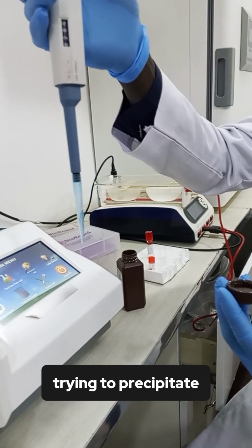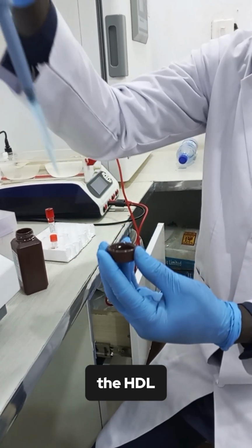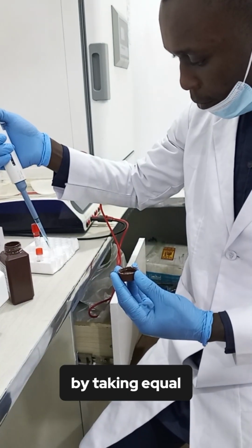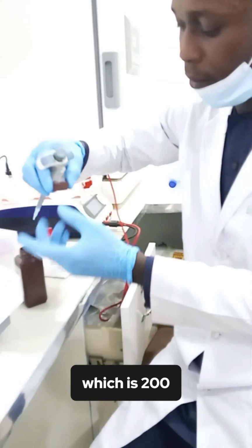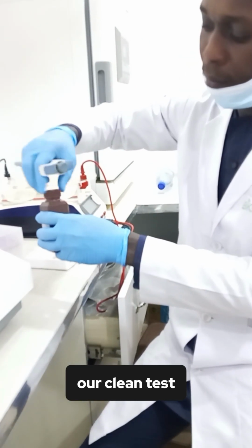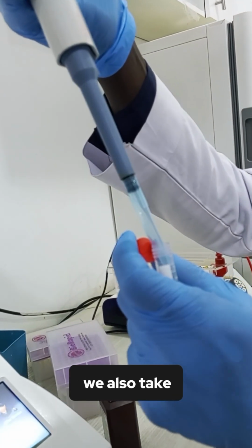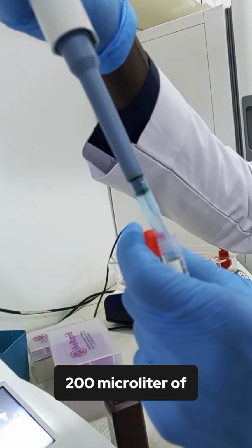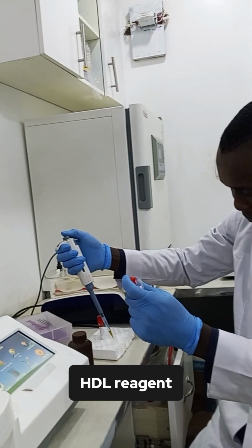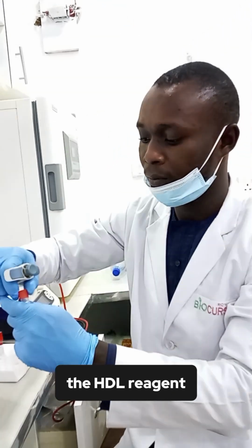Trying to precipitate other cholesterol, leaving the HDL, by taking equal volume of reagent, which is 200 microliter of our HDL reagents, into our clean test tube. We also take 200 microliter of our serum. Add to the HDL reagent.